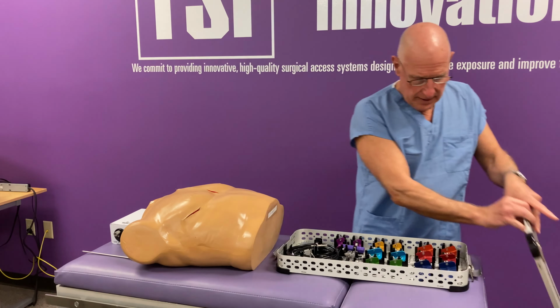So on the upper rib, the blade intersects with the rib at one point, putting all the spreading pressure at that point. With the ULTRAVISION system, the retractor blades, the upper one conforms to the upper rib, thus spreading the pressure. It's dispersed over this, reducing the potential for trauma.